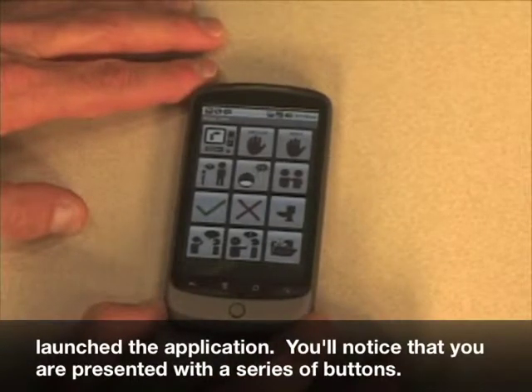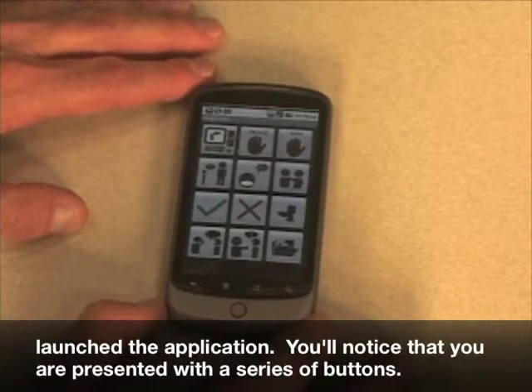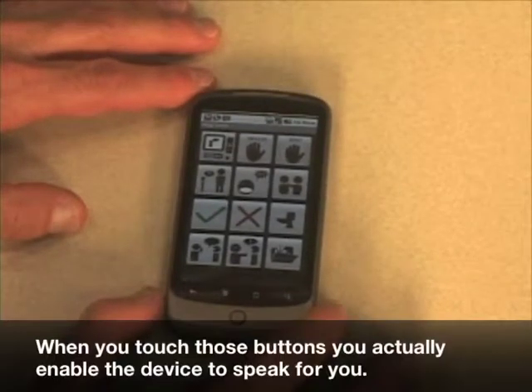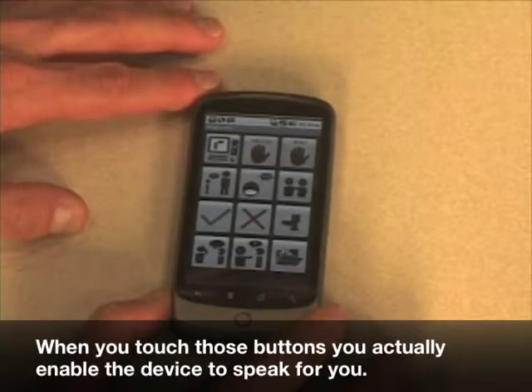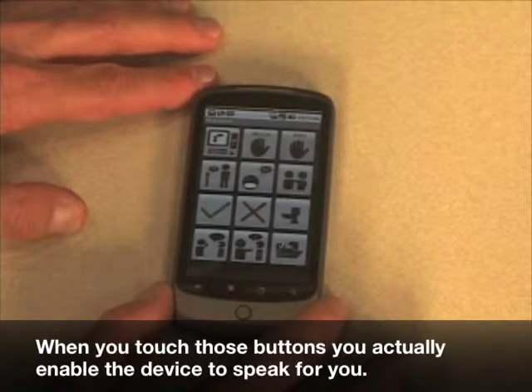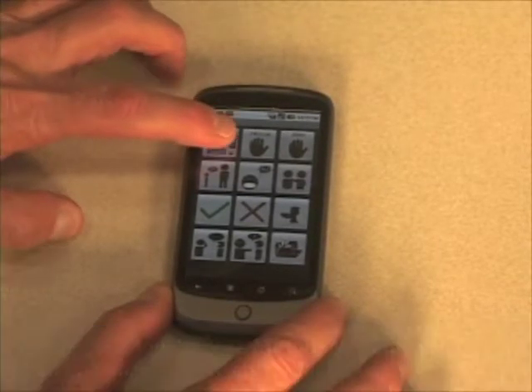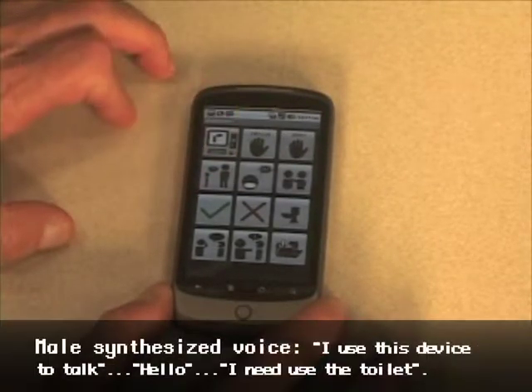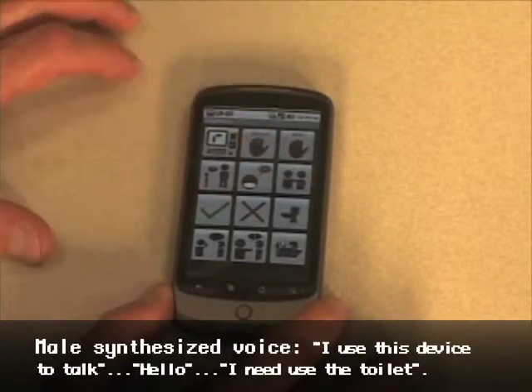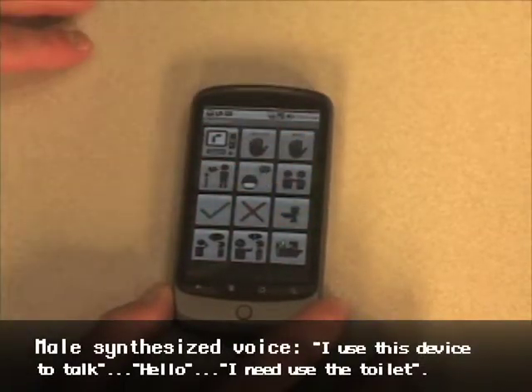You'll notice that you are presented with a series of buttons. When you touch those buttons, you actually enable the device to speak for you. I use this device to talk. Hello. I need to use the toilet.